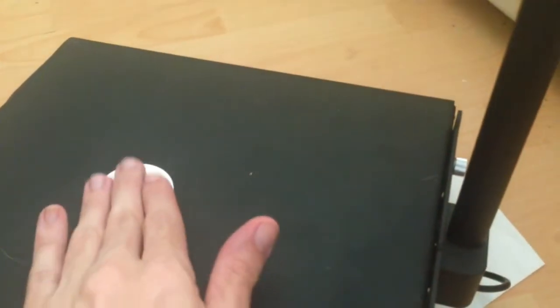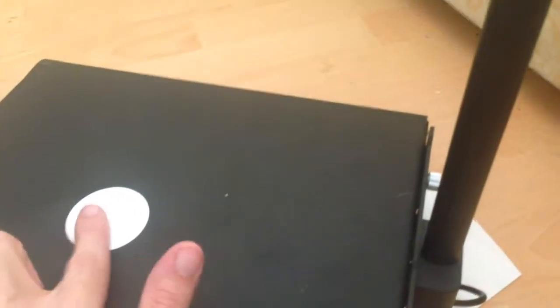As you can see, the camera is now about 15 inches from the document. That's the document bed. This circle — I think it's painted white — is what it uses to show there's no document on it. I can't see colour so I can't actually confirm that.